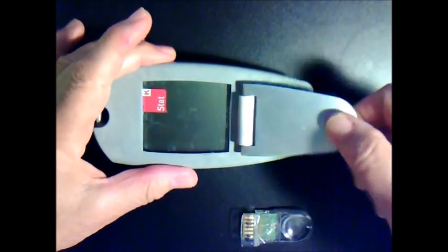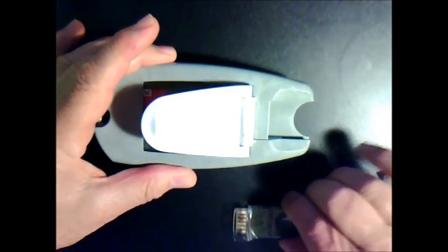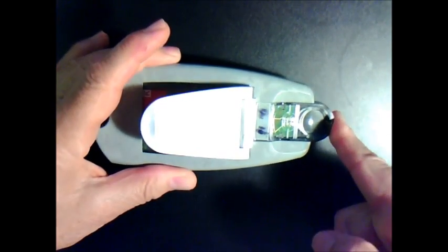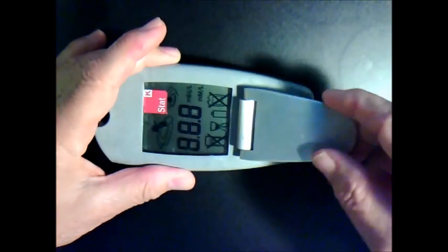How to operate the StatK blood analyzer. First of all, make sure that the blood analyzer is intact. Then lift the flap and insert the cartridge and make sure it's firm and you hear a click.